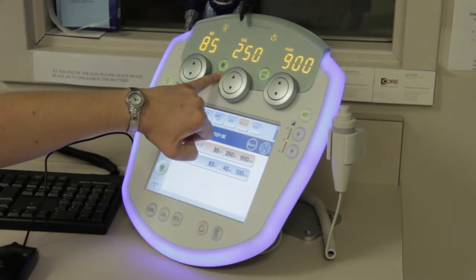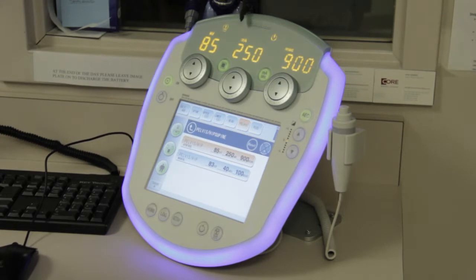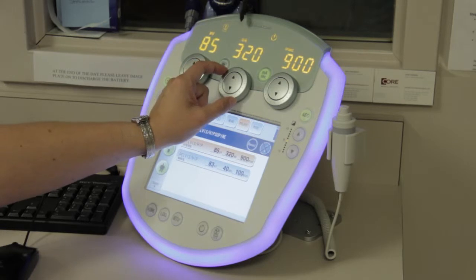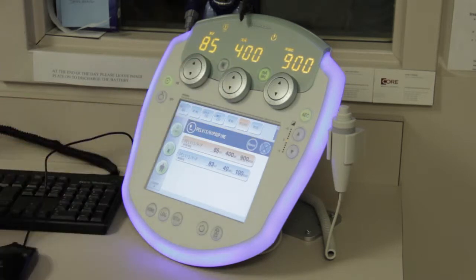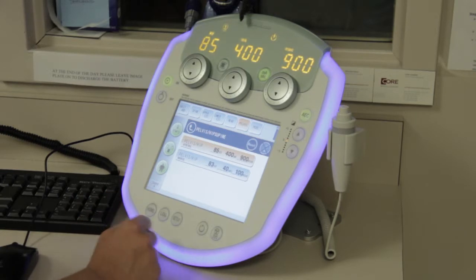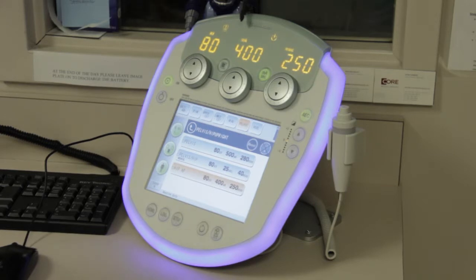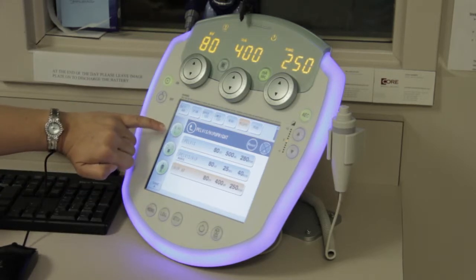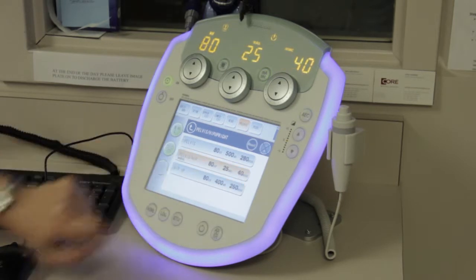If you feel you need a longer backup time or want to change your MA station — if you're on the small focal spot you'll have a green light on it. If you feel you need a faster time because you've got a patient not holding still, you always have the option of changing that MA station. As you go up, it will automatically change to the large focal as needed. Once you change your setting on the Canon screen, it will send another message to the generator setting your technique again.